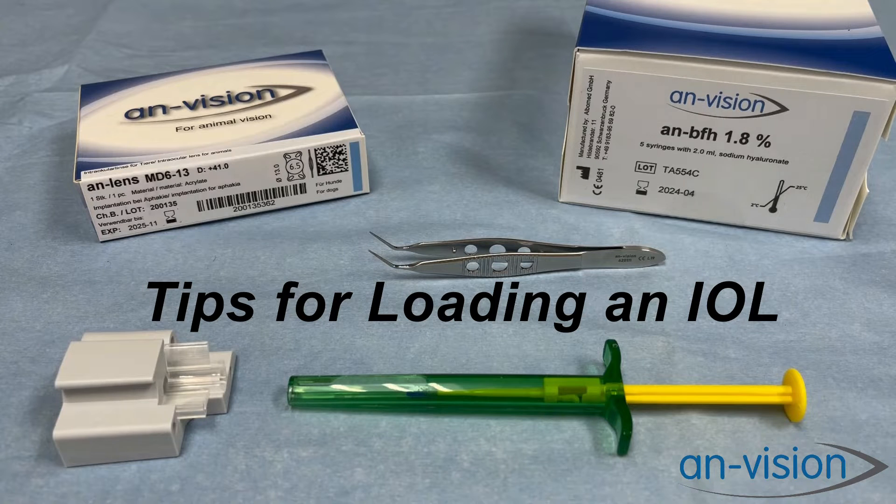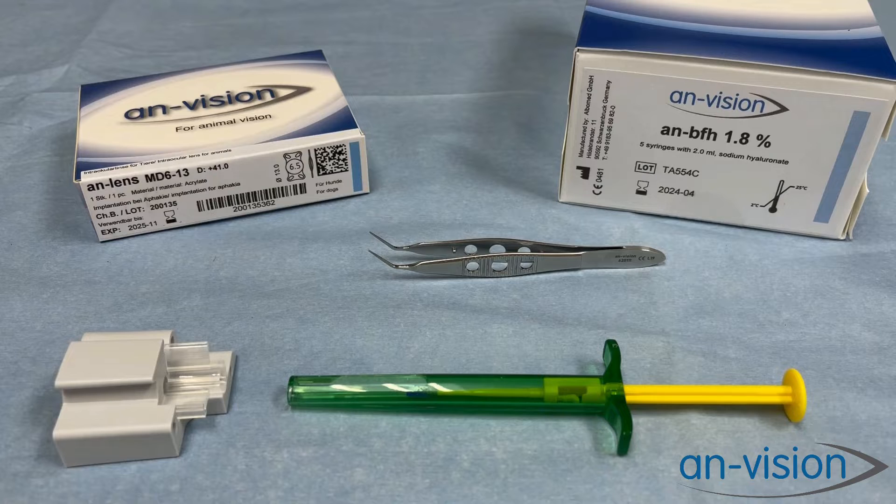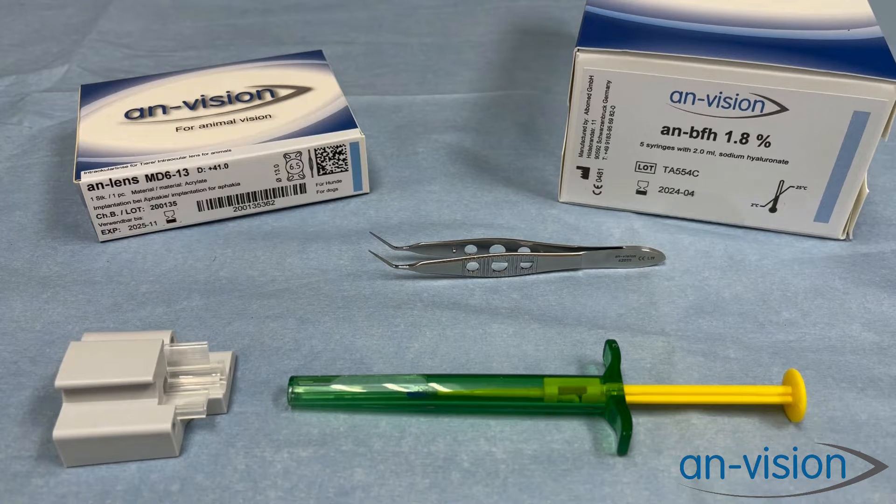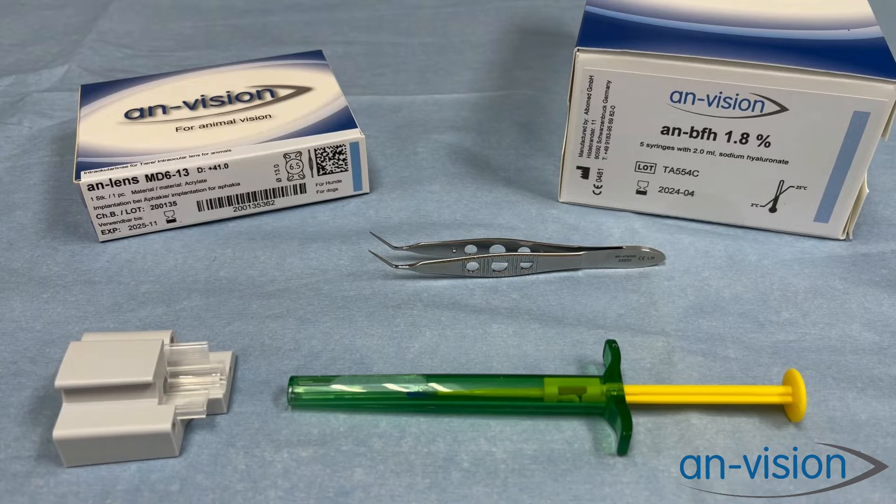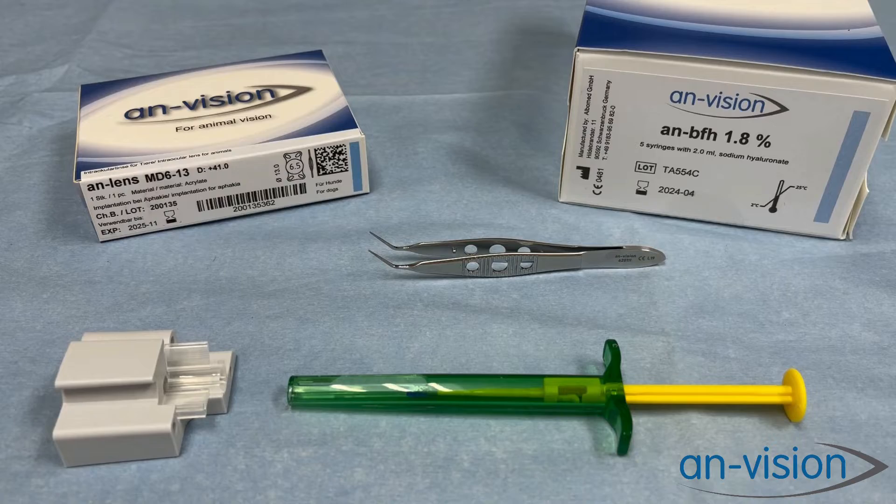For this video, I will be using the MD613 IOL, the ANBFH 1.8% viscoelastic, the AnVision IOL holding forceps, and the new Viscoject Easy Injector.